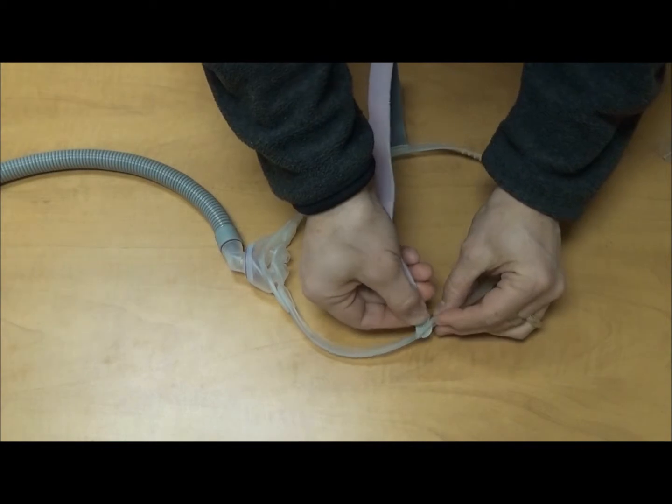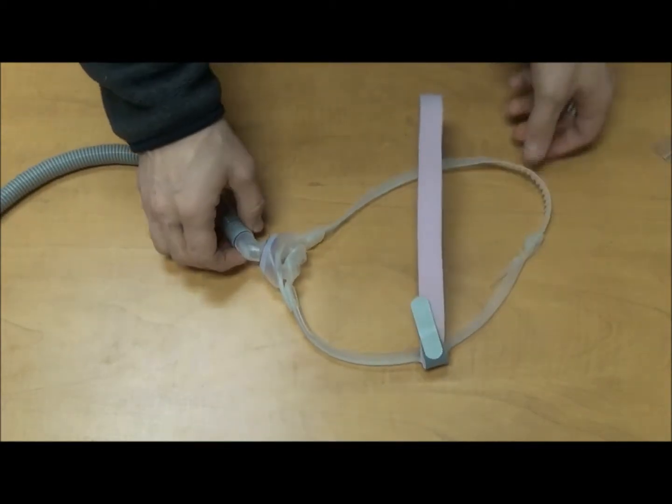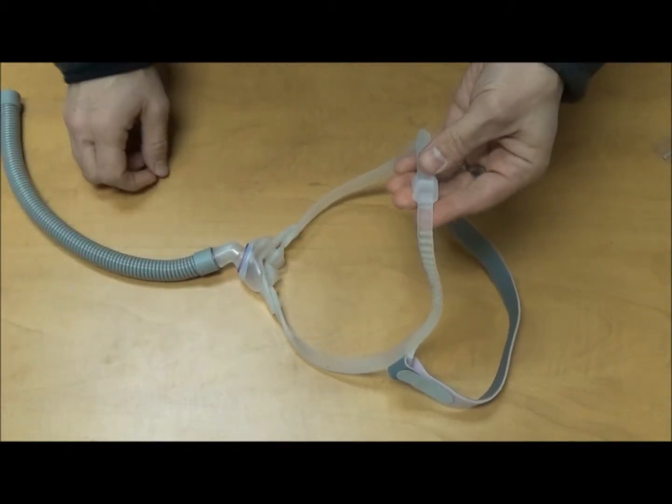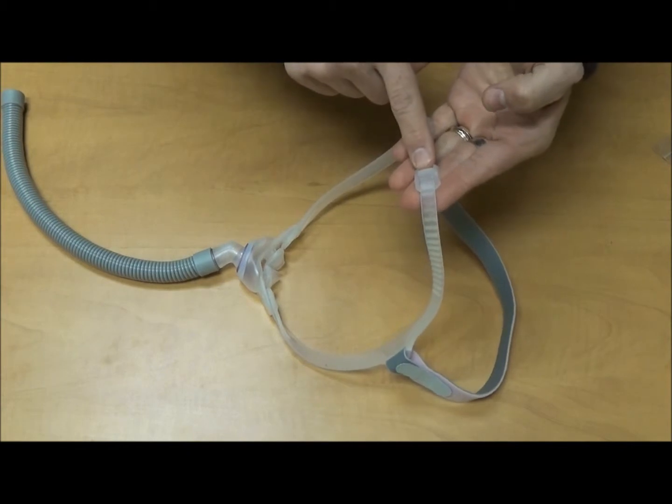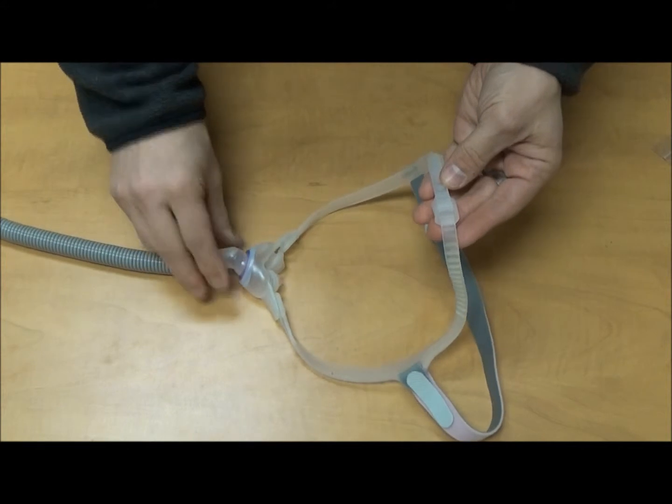Throw that in there. Now we've got the pink headgear. Oh yeah, of course, this means it's going to go on like so because this is the top portion of the mask. The S is in the right position. You've got this ready to go. You'd think we're ready.